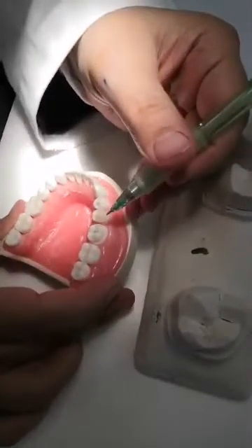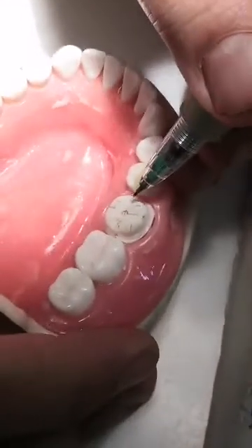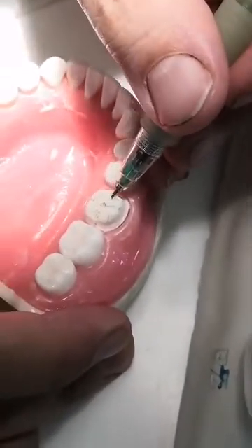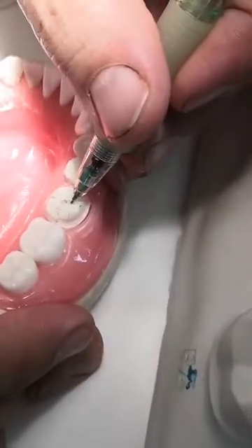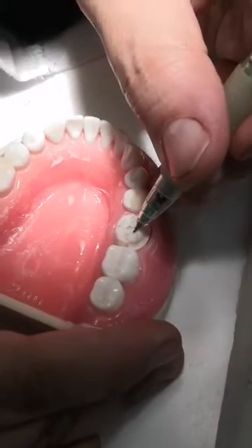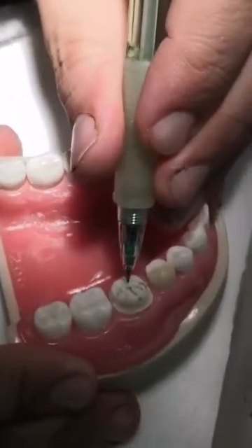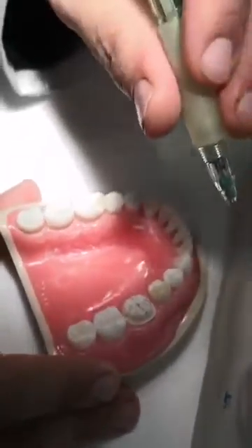We're looking at another case of a student's preparation. I was telling you that I could see the groove going through the central area — sorry, not the groove, it's the ridge. The ridge here is prominent and distinct from the groove here. You have done that correctly. This groove and this ridge are also distinct. Going lingually, the same thing is present. You have kept the original morphology — that's excellent.